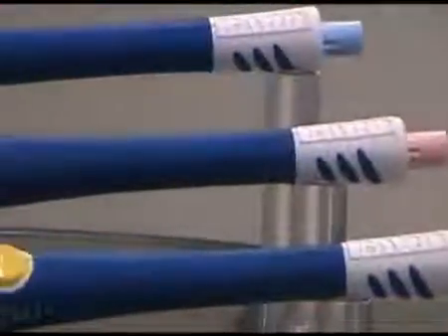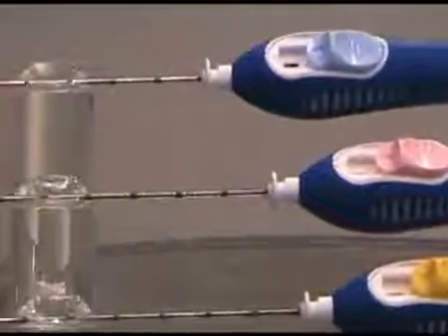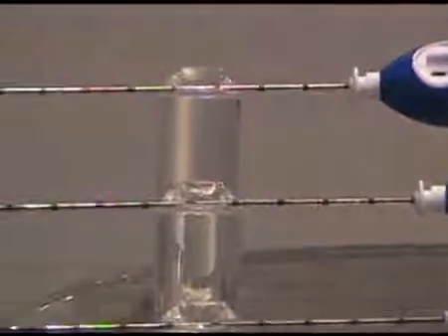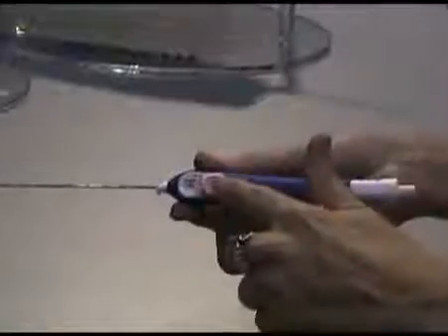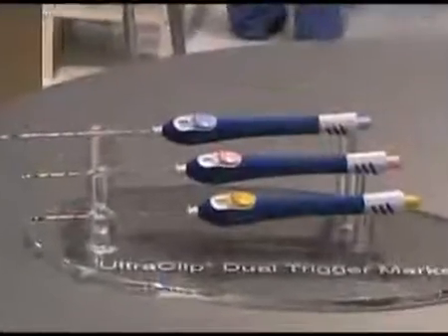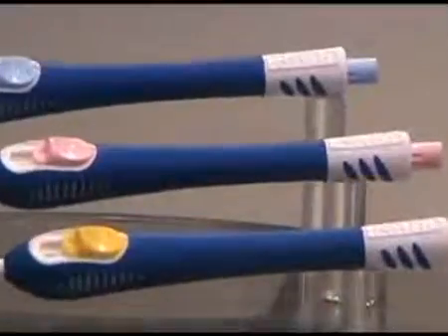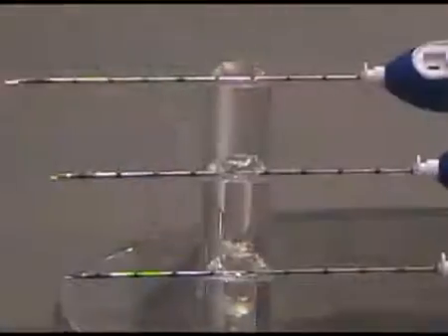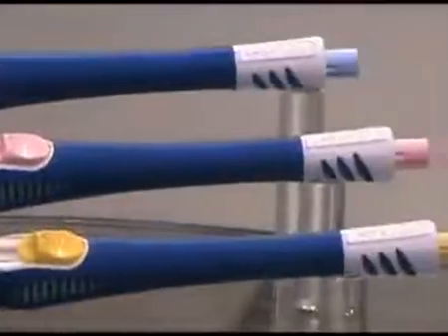Bard's newest breast tissue marker is Ultraclip Dual Trigger Markers. They are simple to use and provide exceptional control. Through the choice of a front trigger or alternate rear trigger deployment system, it gives the user an accommodating deployment method. In three unique shapes, the user has permanent ultrasound enhancement. Dual trigger markers are designed to be deployed through the Finesse integrated coaxial system.